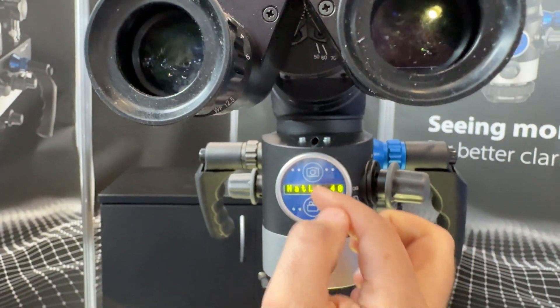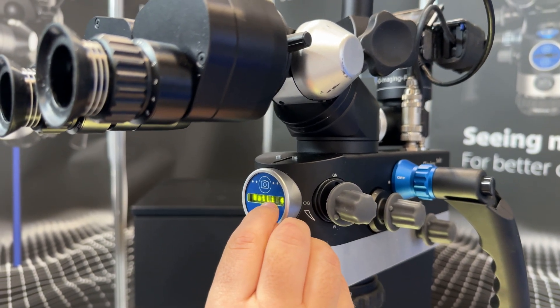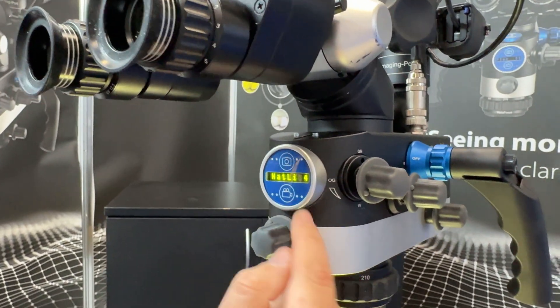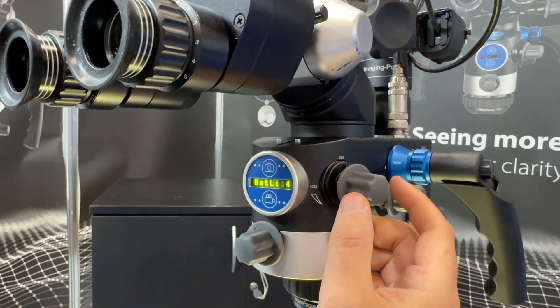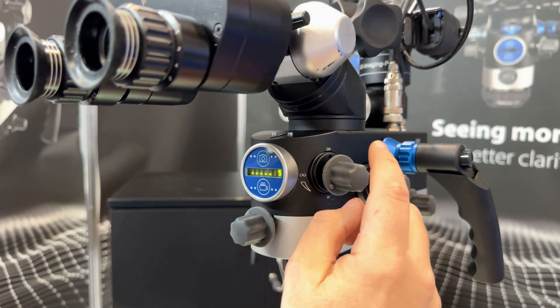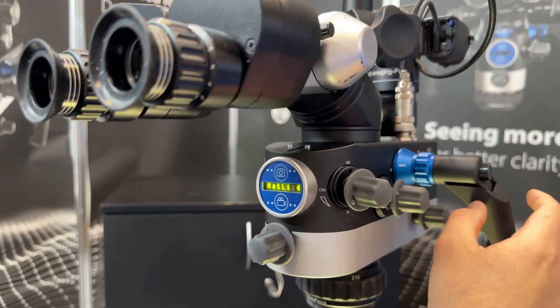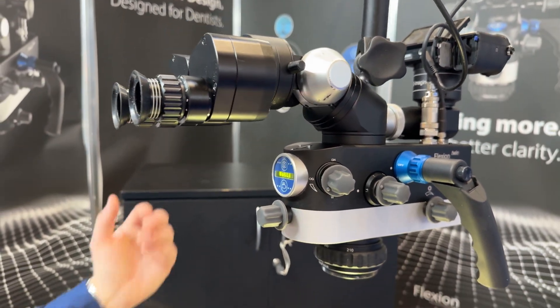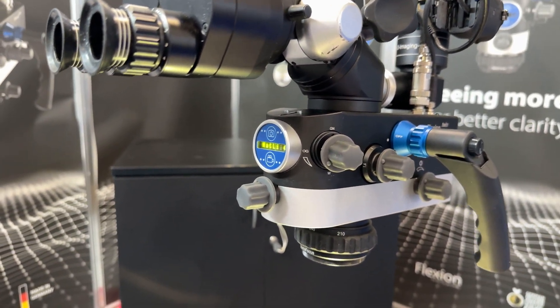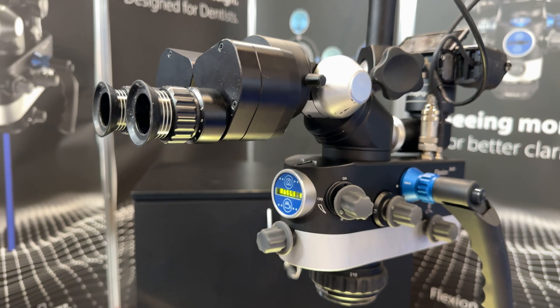You can take pictures from here as well. If you want to set it at a particular brightness level you just push the joystick in and it will set - we've set that at 40 on the natural light. If we go back to natural light it'll be at 40 again. I like the idea of being able to store your preferences. With my scope I never know where I've been twiddling it.